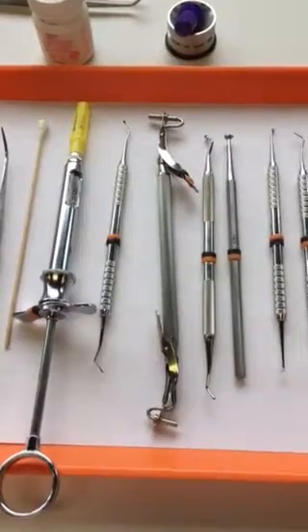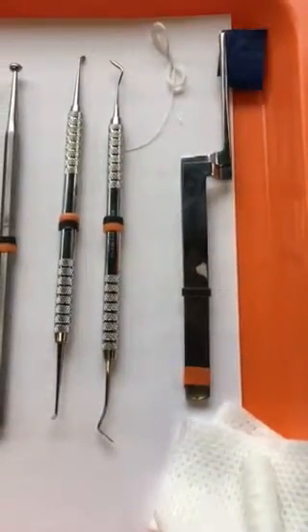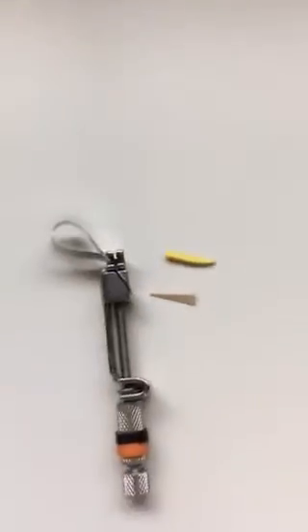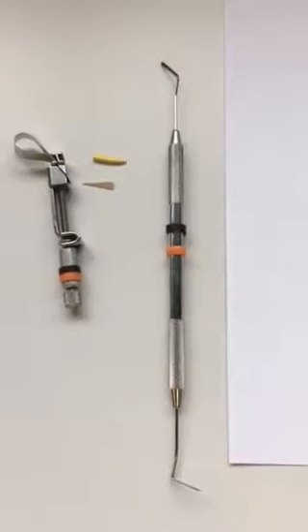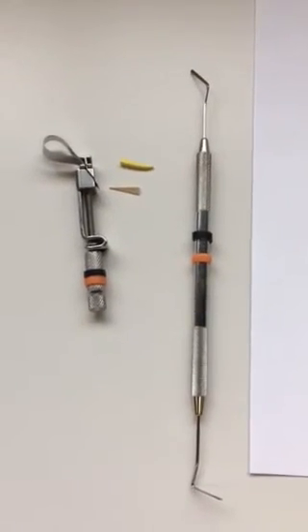We don't need the wedges, and we no longer need the interproximal carver because there's no wall to actually carve. So these are the things that are missing: the matrix band, the wedges, and we don't need the interproximal carver anymore. That is the difference between a Class 1 and a Class 2 amalgam tray setup.